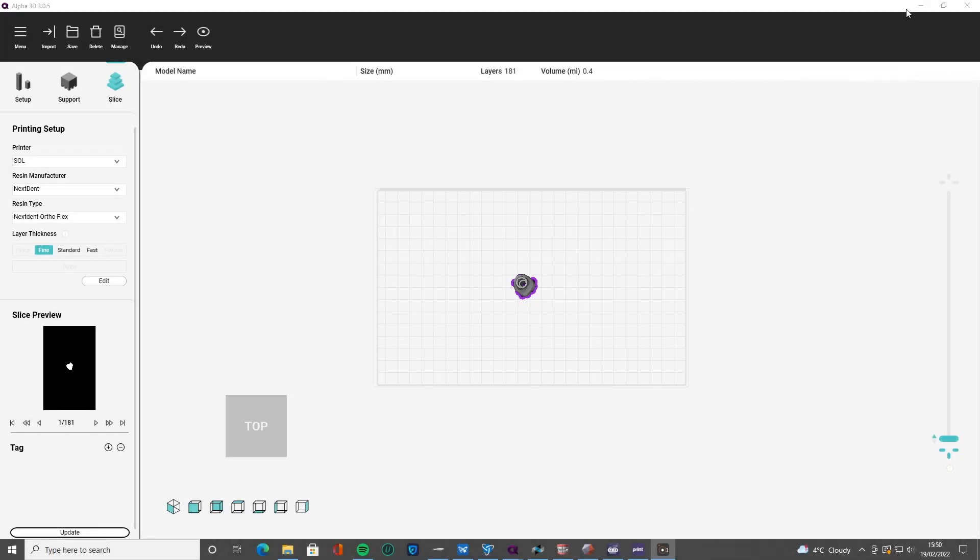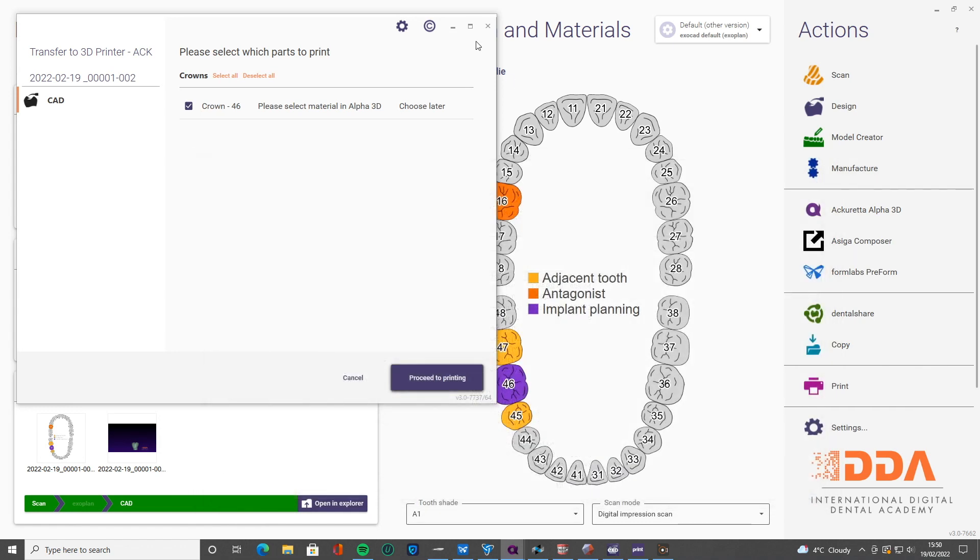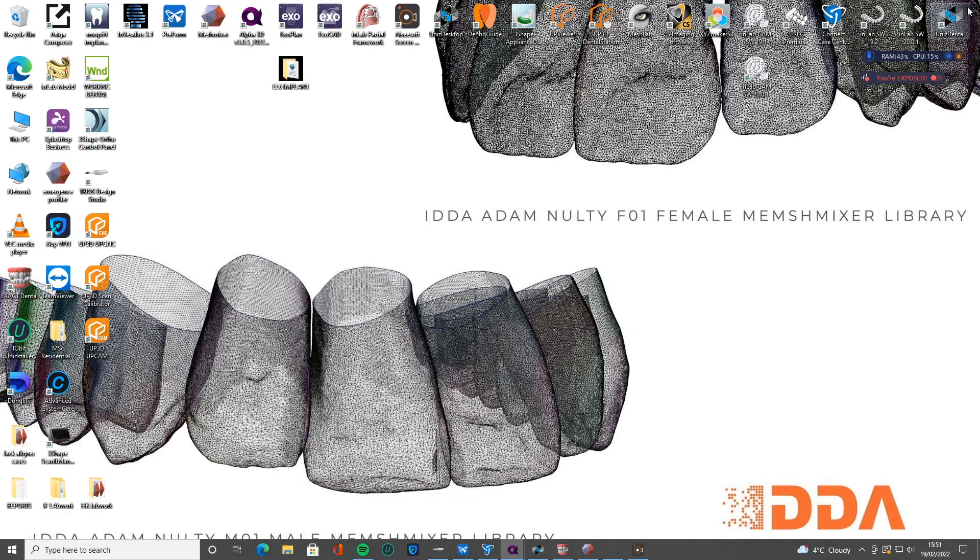Hi everybody, so in this second tutorial I'm going to show you where we left off. We had that crown that was ready to 3D print here from Exocad, so I'm going to save and I'm going to show you how to set up the guide design.